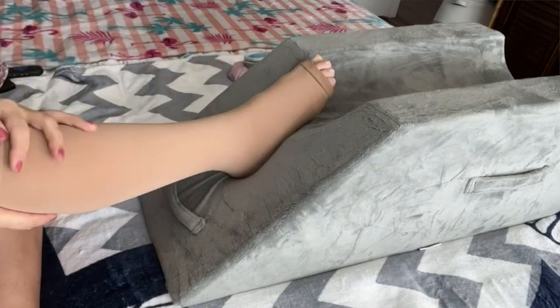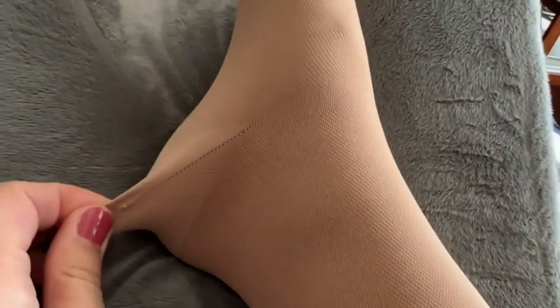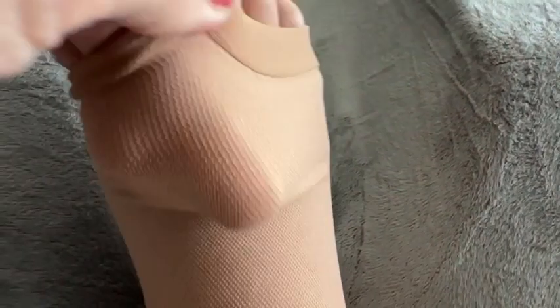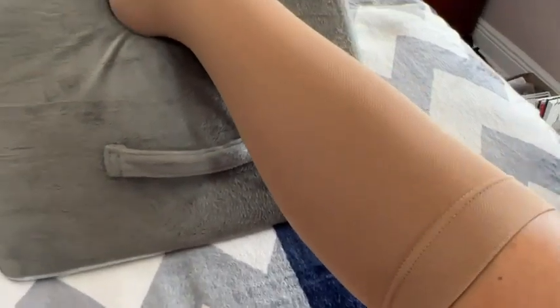I was worried that these would be uncomfortable or tight but I am very happy with them. In fact, when I'm not wearing them I feel less secure, so it's been a really good purchase for me. I'm pleased with how nice the seams are. The fabric is soft. It's so important after you've had an injury or surgery, or whenever you have to wear compression stockings, that they're as soft and comfortable as possible, and I'm very pleased with the sense of pressure that I get from these.